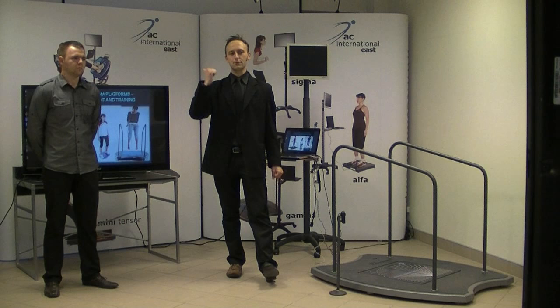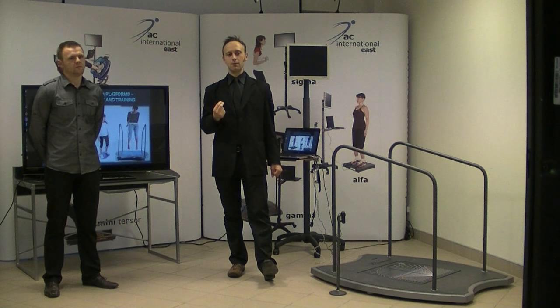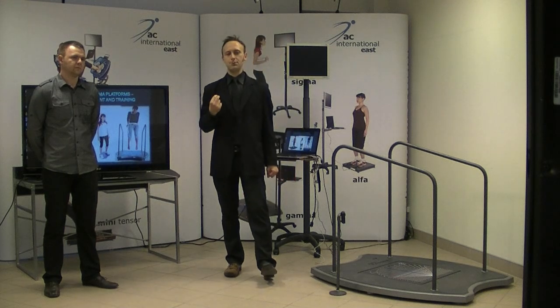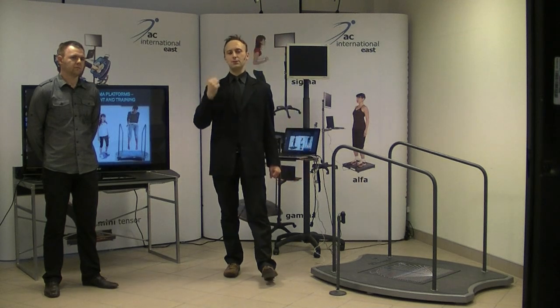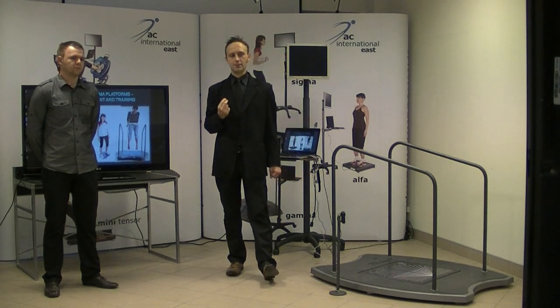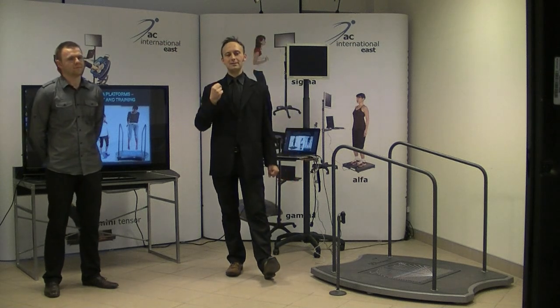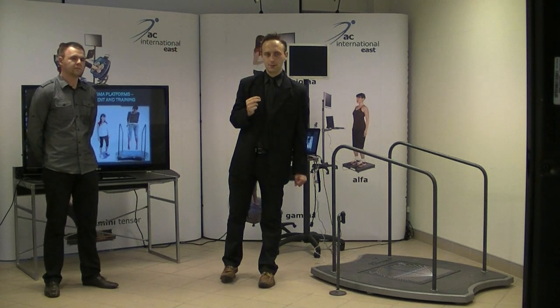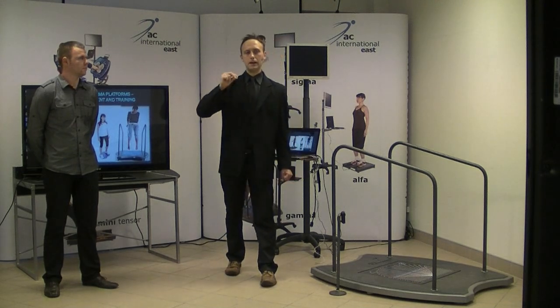So we can use them in orthopedics, neurology, sports, children, and also for the assessment of balance disorders of unknown origin. Where can we use them? We can use them in rehabilitation centers, physiotherapy facilities, hospitals, wellness and sport clubs. As I mentioned, we will talk about the 3 stages of rehabilitation, and they are associated with increasing the difficulty of the tasks which are done by the patients.